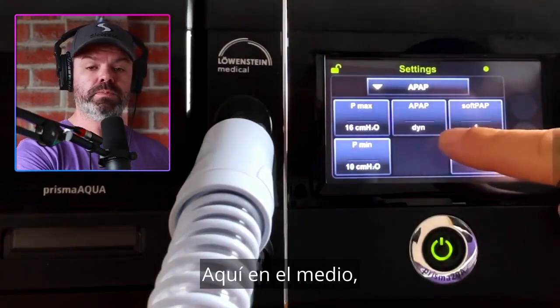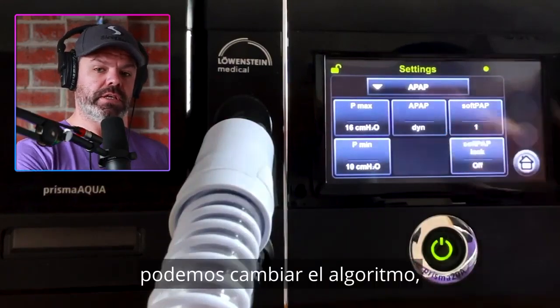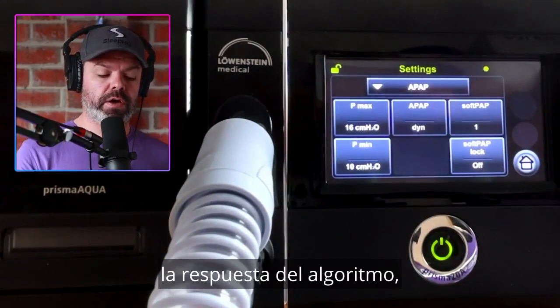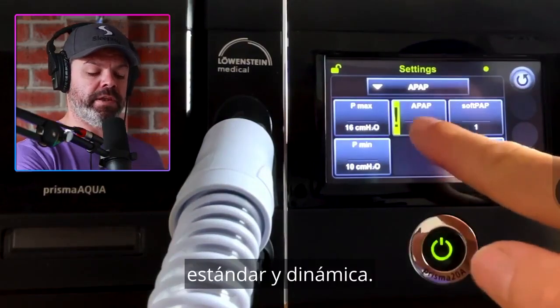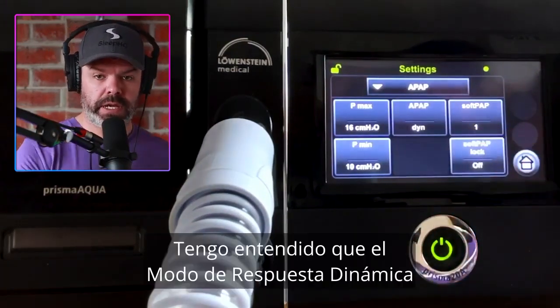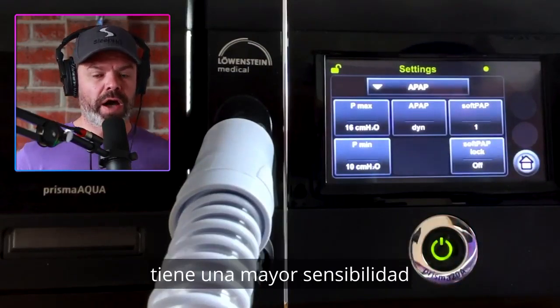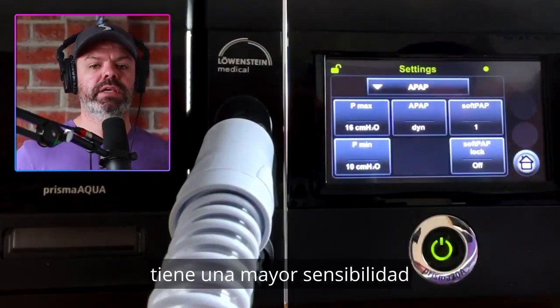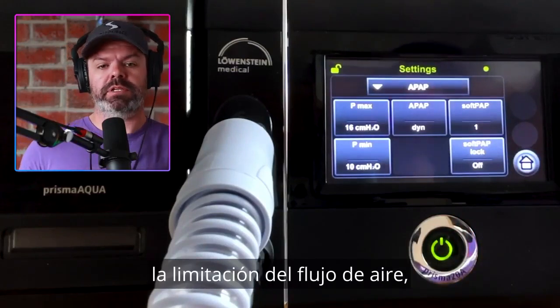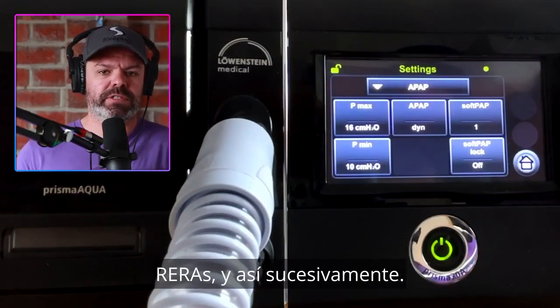Here in the middle we can change the algorithm response — standard and dynamic. The dynamic response mode has a higher sensitivity to conditions like snoring, airflow limitation, upper airway resistance syndrome, and so on.